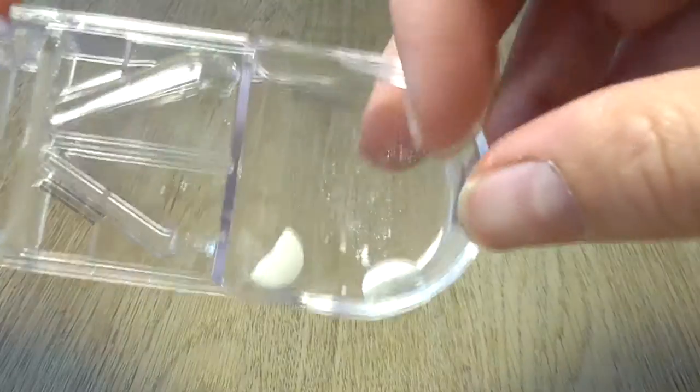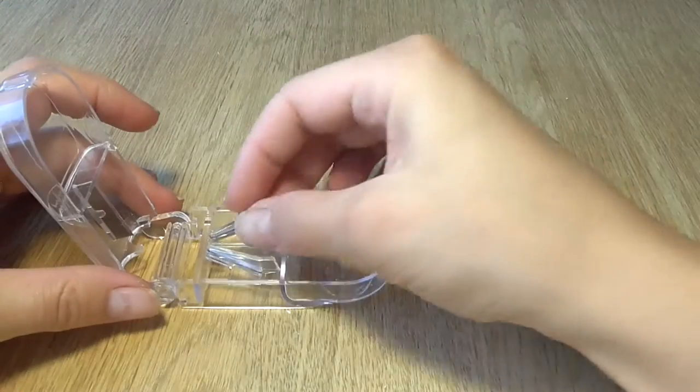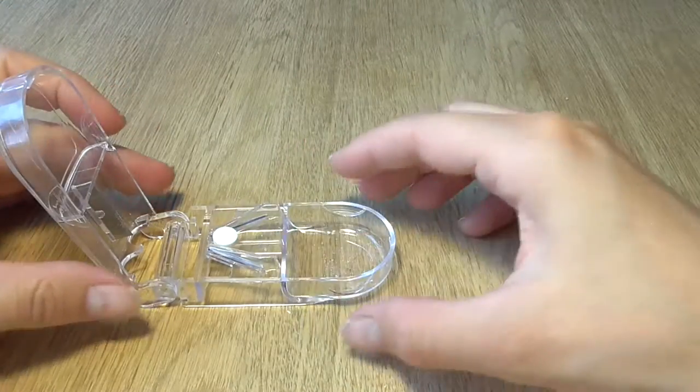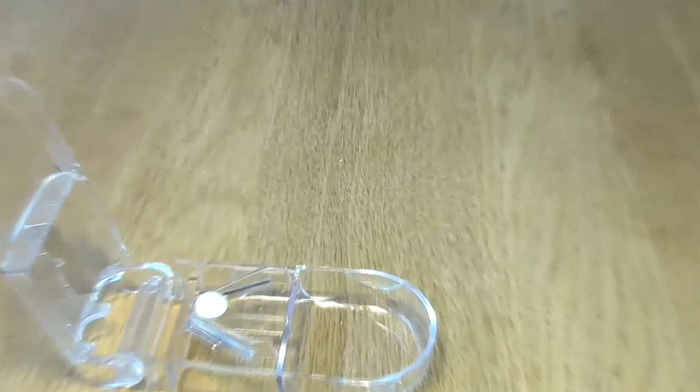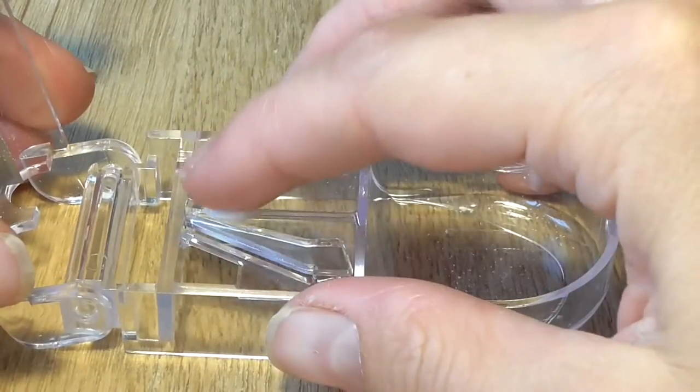Ok, let me see if it can cut even a smaller tablet. This is the smallest one I found. Let's put it in here and press gently.